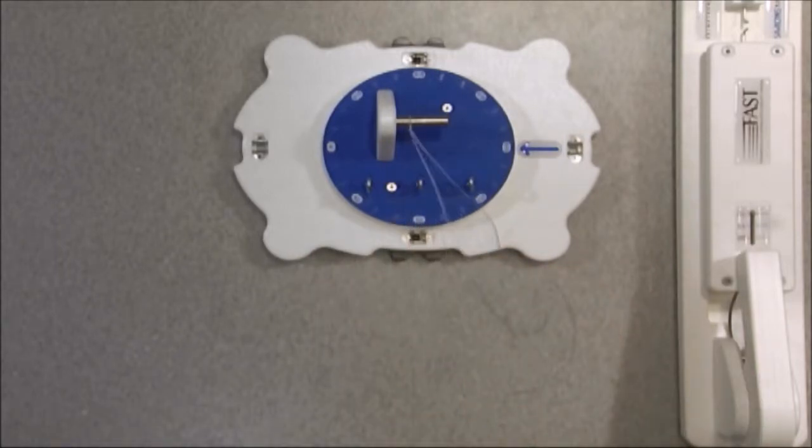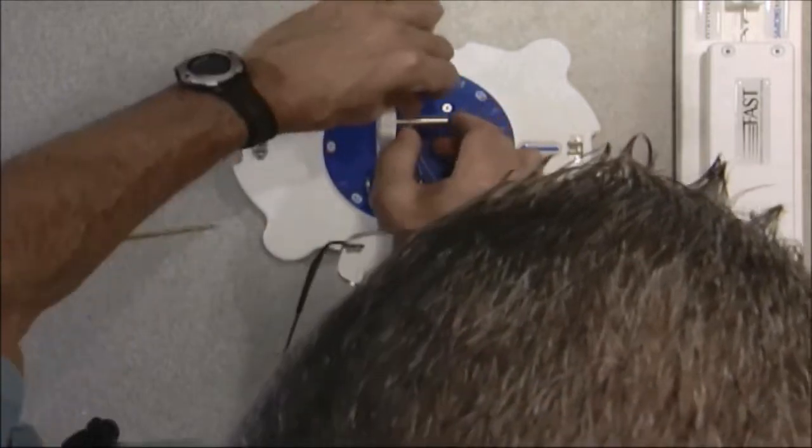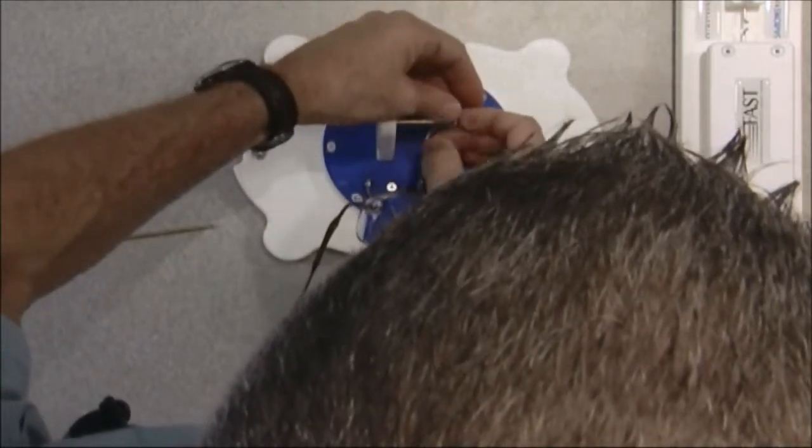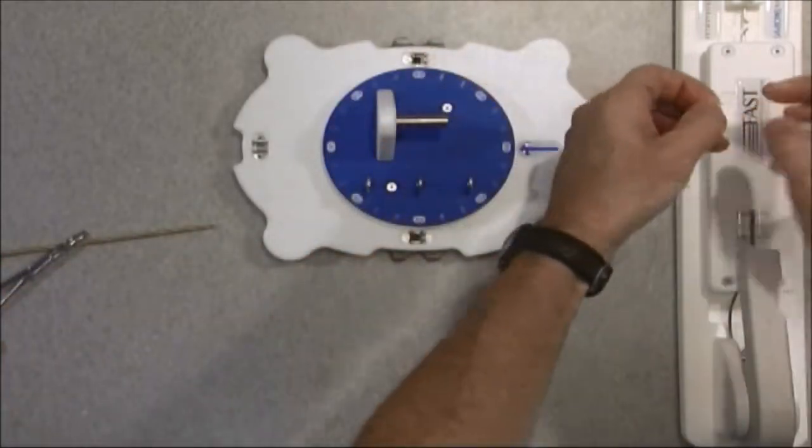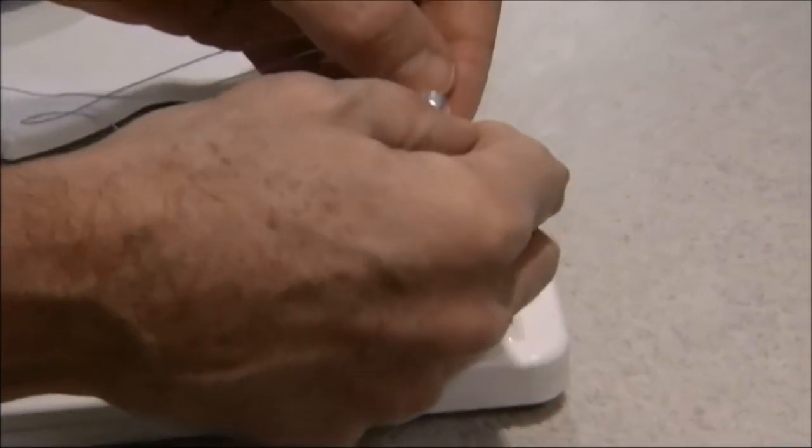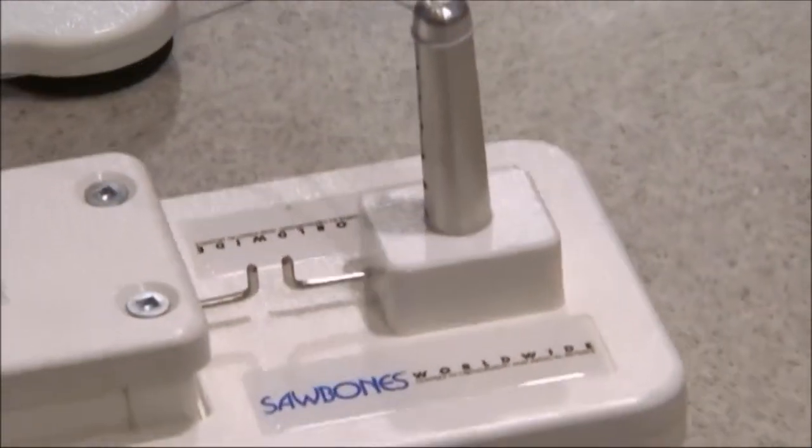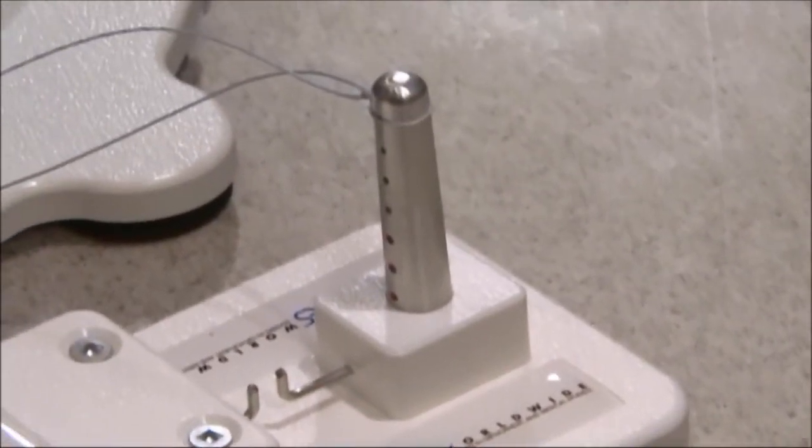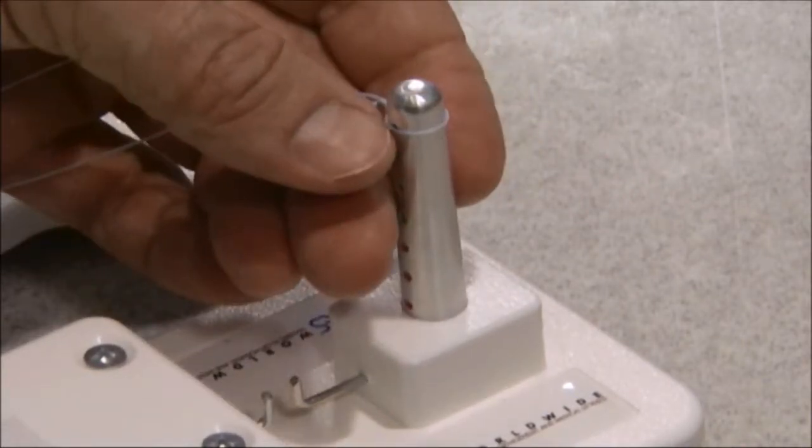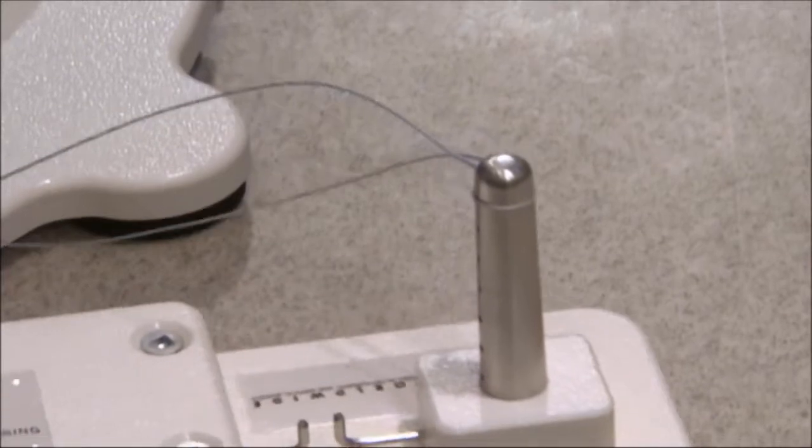What I'm going to do is I'm going to slip it off of my mandrel. I'm going to gently come over here, and I'm going to look at the loop security. And as I put it on the cone, we can zoom in. And the loop is actually not so bad. I mean, it's the same size. It came to the first dot. That's the same size as the mandrel.